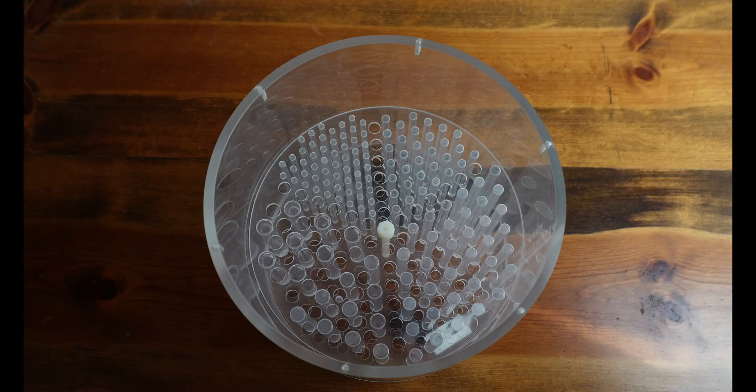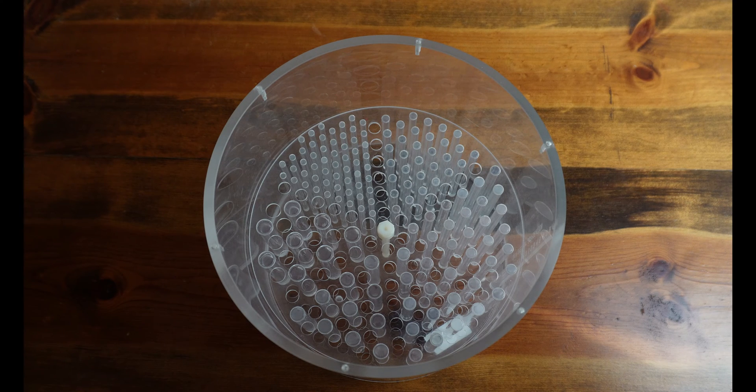Now that you know a little bit more about the Phantom itself, let's show you how we're going to arrange the Phantom. So let's go ahead and get started with putting this Phantom together.